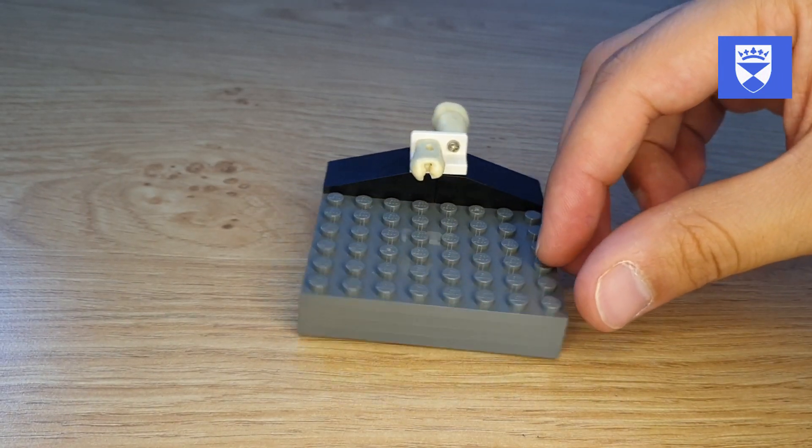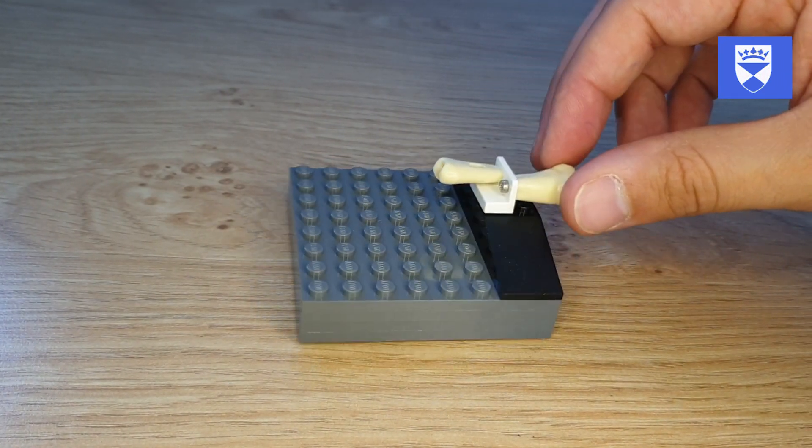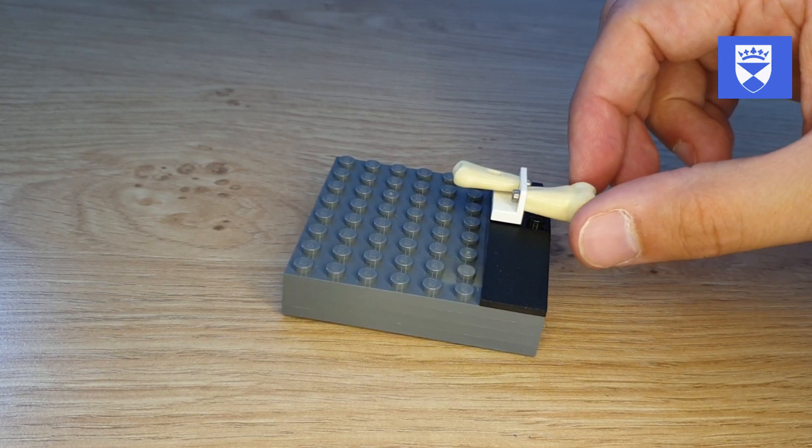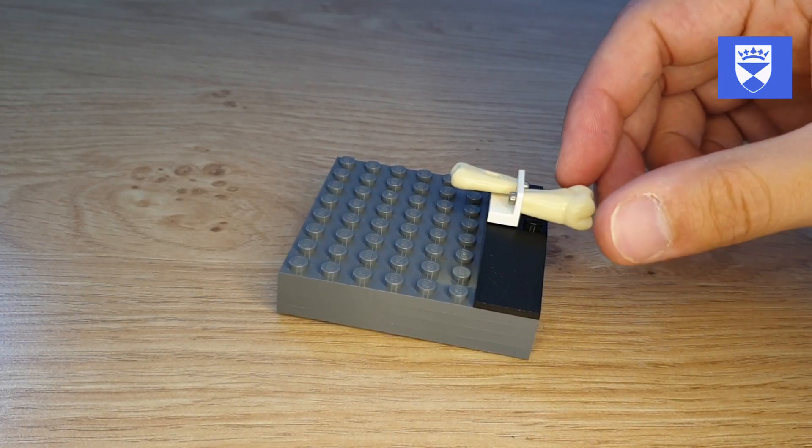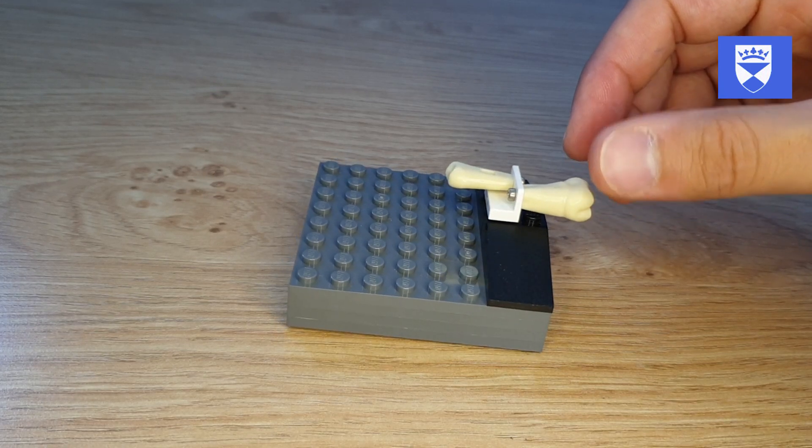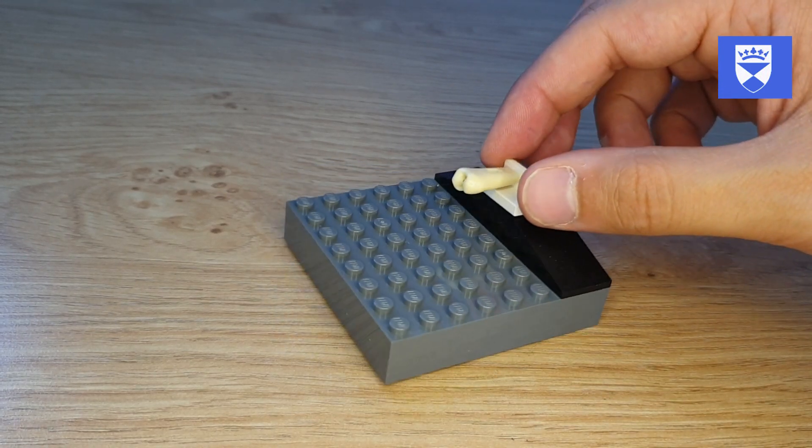The beauty of this system is that we get to use a readily available popular children's construction toy in a way that allows us to cost-effectively reuse existing teeth.